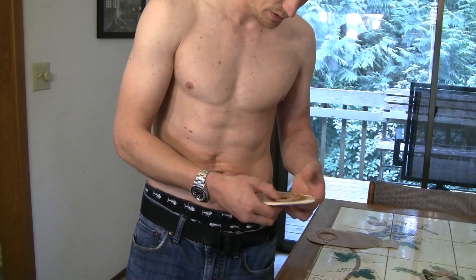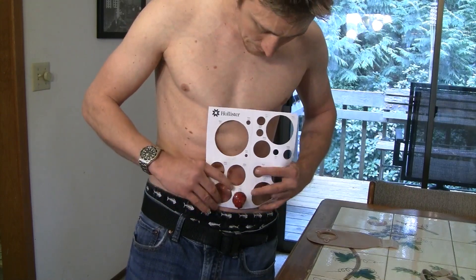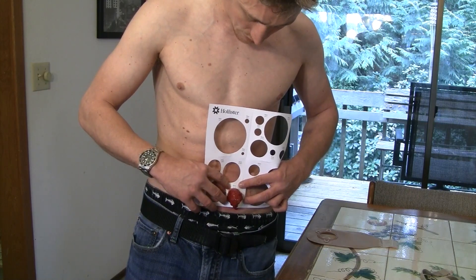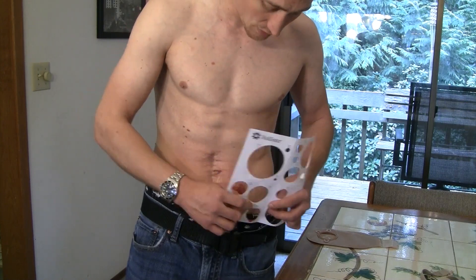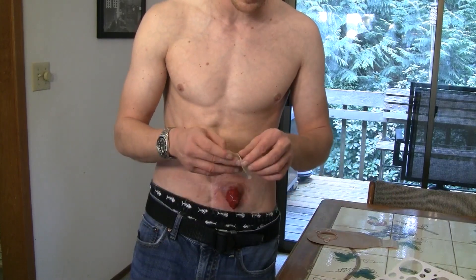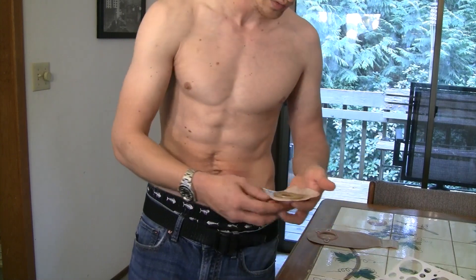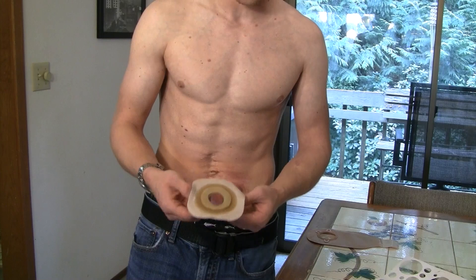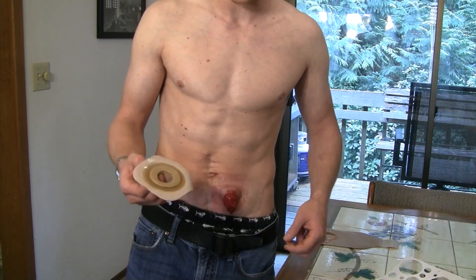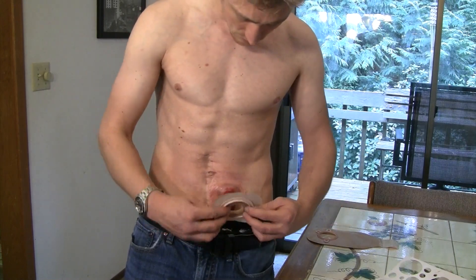I've cut the wafer out and I'm putting my barrier ring on now. I probably should have measured beforehand. I like to have a couple of millimeters to a quarter of an inch gap around the stoma. I'm a little over-cautious because the bottom side of my stoma is already cut and I'm worried it could cut all the way through — so I cut a bit larger than strictly needed, but I'd rather that than damage the stoma further.